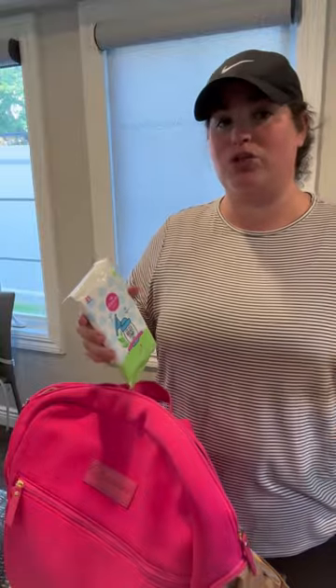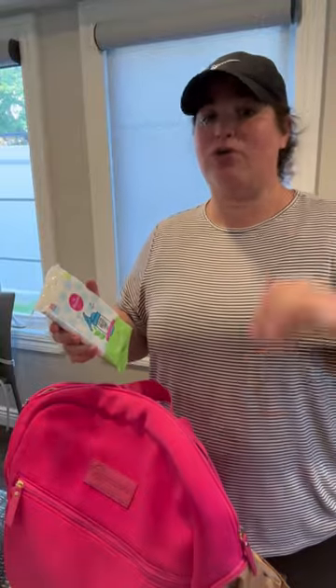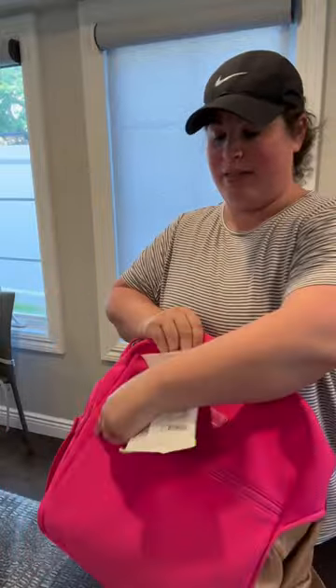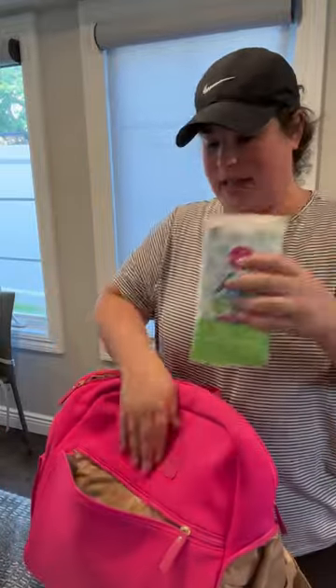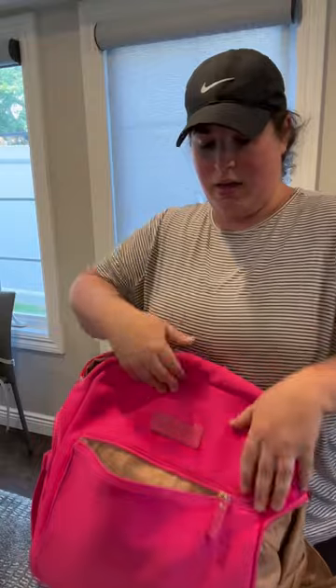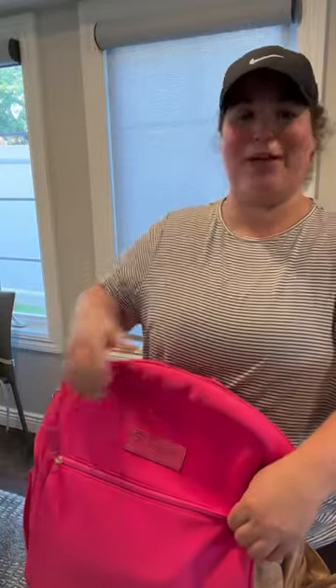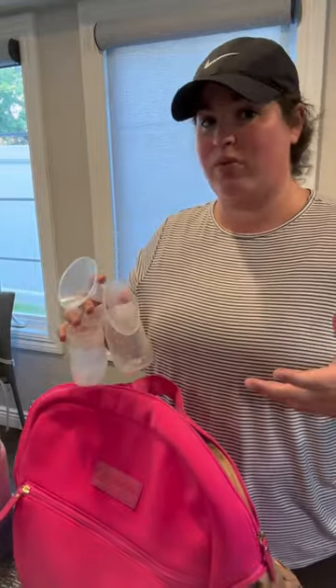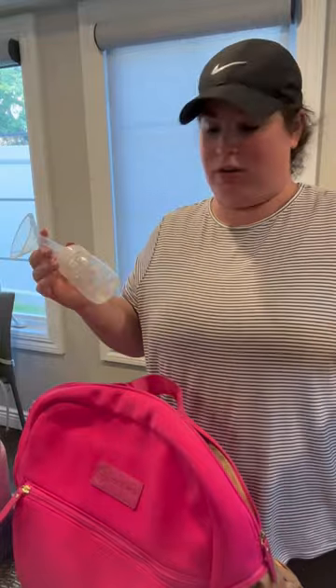You just wipe it down if you don't want to use the fridge hack on the go and you don't have space for extra flanges or you don't have them. I always keep these in my bag in the front pocket just in case — I don't often use them, but it doesn't hurt to have them. They also work on bottles and pacifiers that fall. Some people will choose to just bring extra sets of flanges — I would often take two or three with me if I had the space.